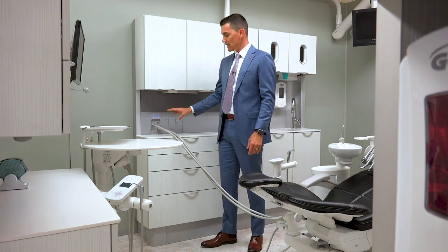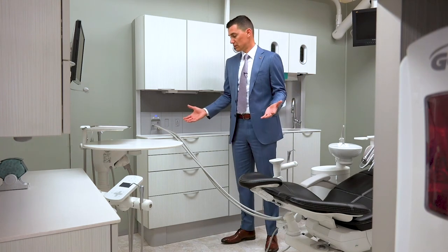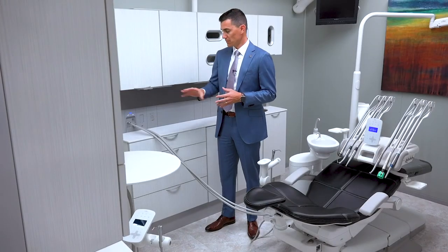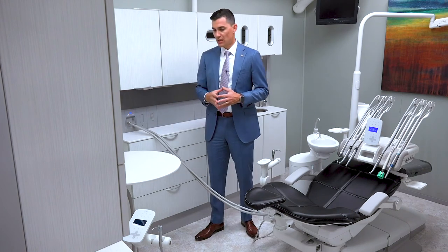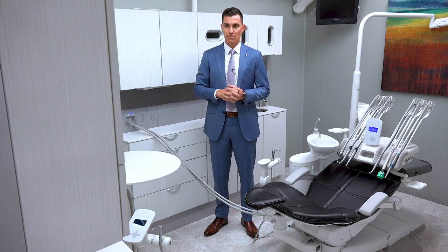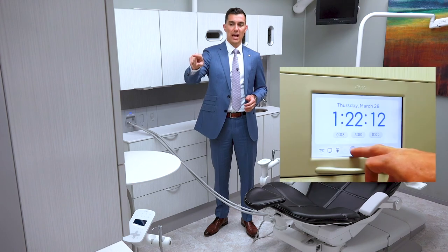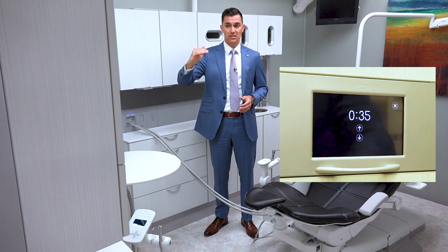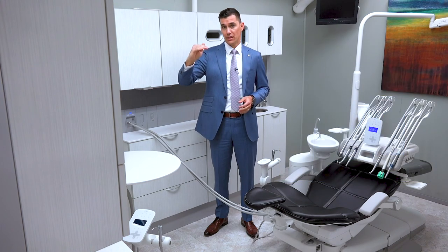If we need to adjust the time and the amount of flow being pulled out of the tank, we recommend one liter of solution per cycle. We can adjust that time at the distribution box — this is the manual setup for turning it off and on. If we have a 591 rear control center, we can also adjust that time by depressing the ICV button on the rear cabinet control center and holding it down until the black screen shows up, which allows us to increase or decrease the time needed to pull the correct amount of fluid out of the tank.